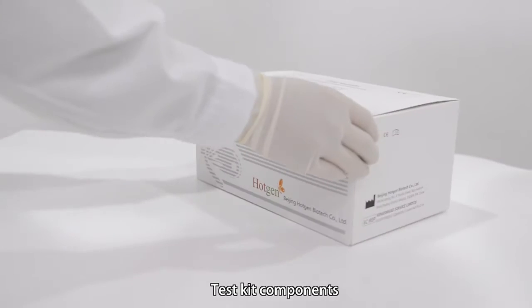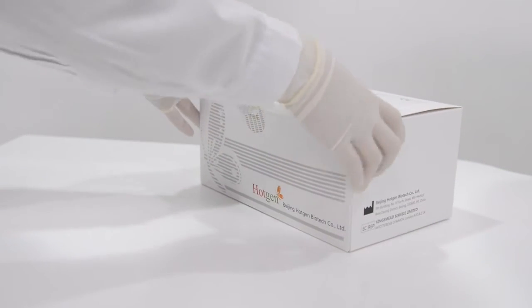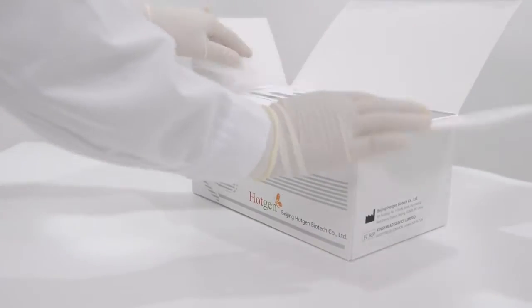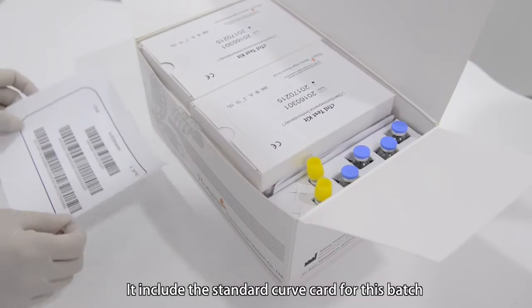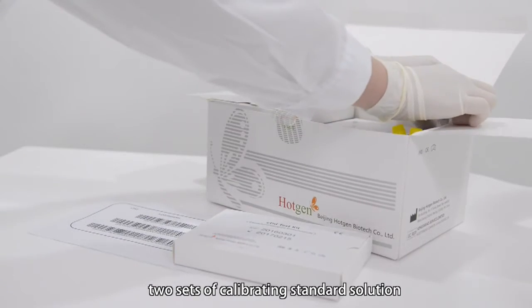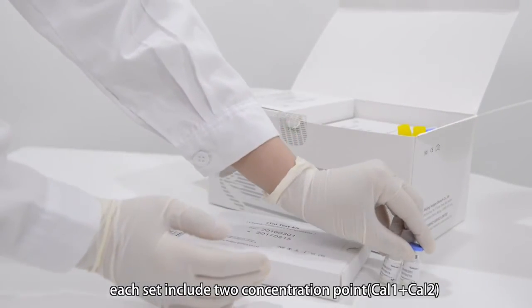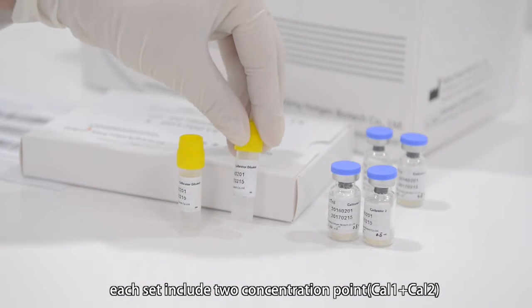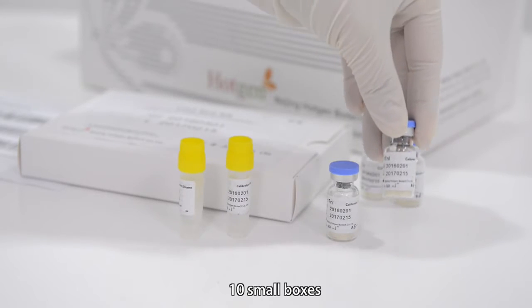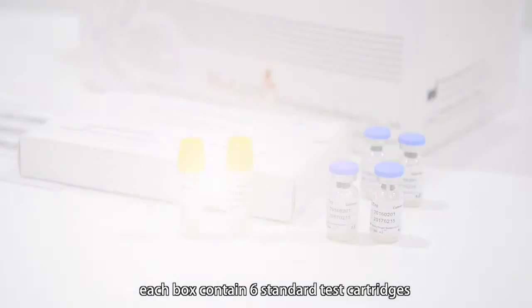Test kit components include the standard curve card for this batch, two sets of calibrating standard solution — each set includes two concentration points: Cal1 plus Cal2 — two bottles of diluent, and ten small boxes, each box containing six standard test cartridges.